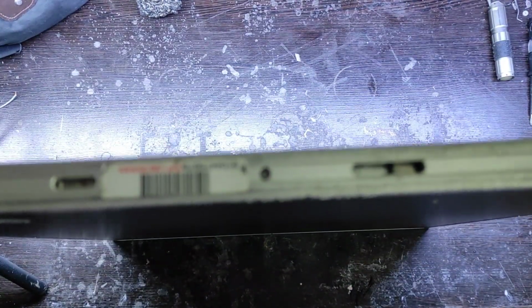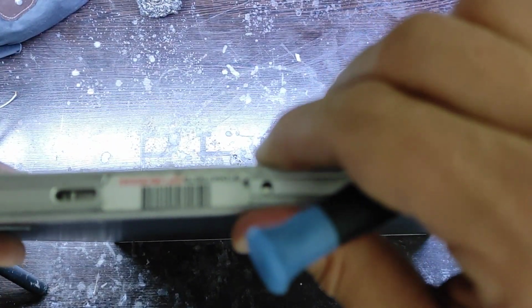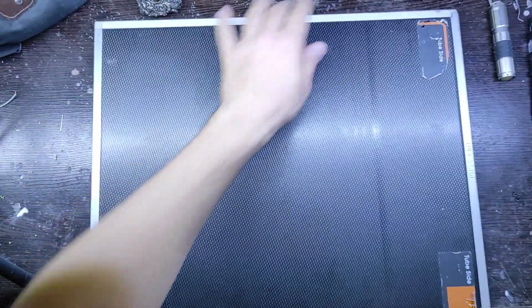When we want to test the cassette, we put a series of accessories on the black area of the cassette and use X-ray to irradiate it, and then insert the cassette into the CR system.